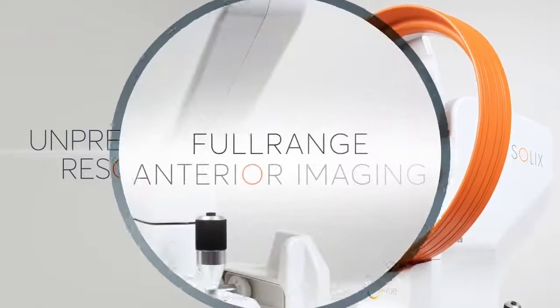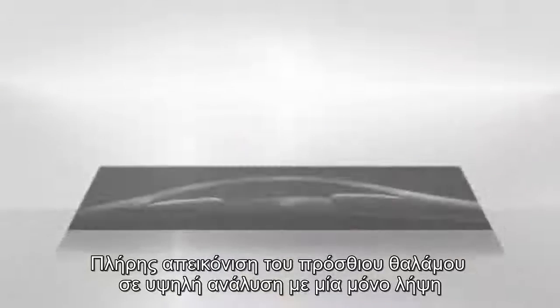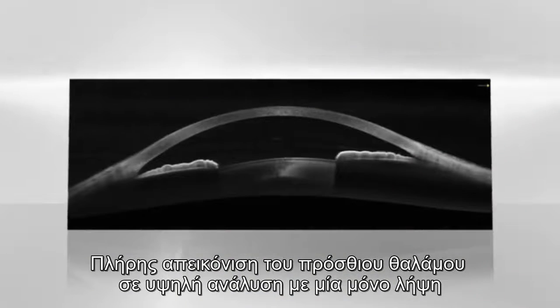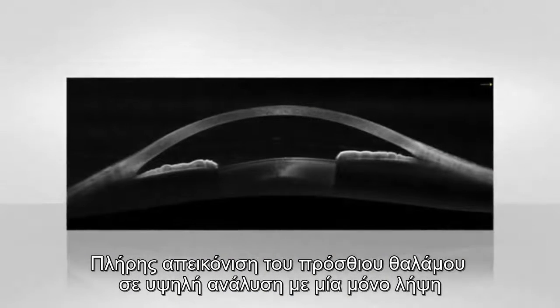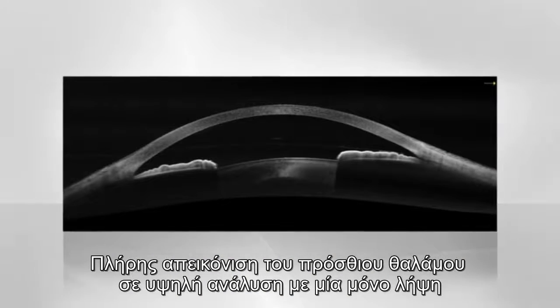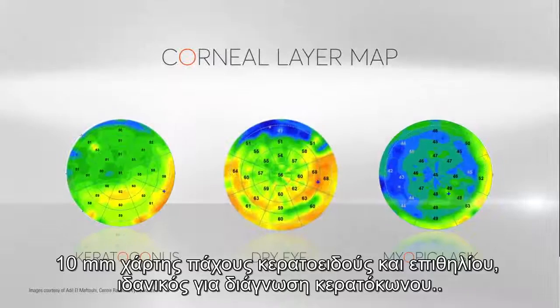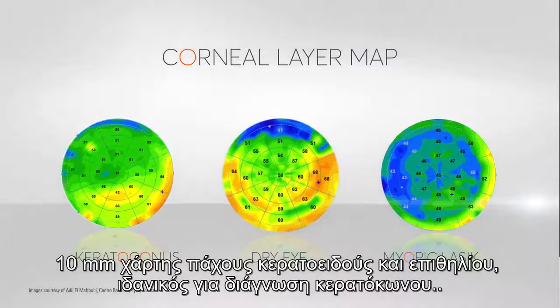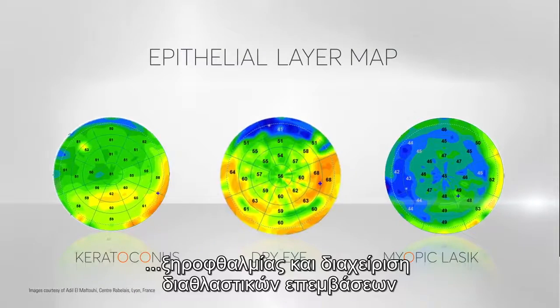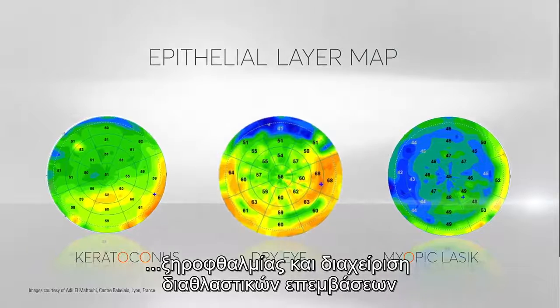Full range anterior imaging captures stunning views of the entire anterior chamber in a single scan. The 10mm corneal layer map aids in disease diagnosis and refractive surgery planning.